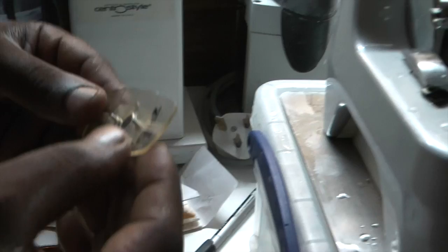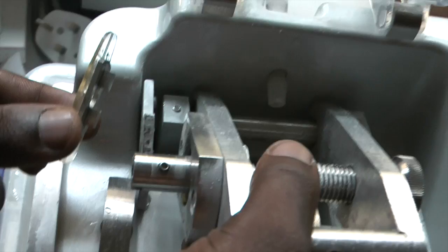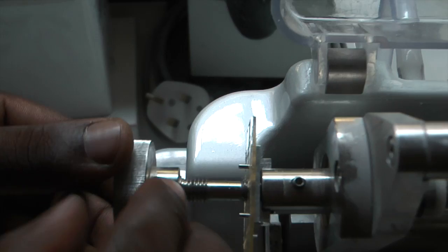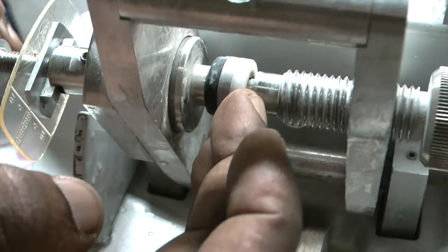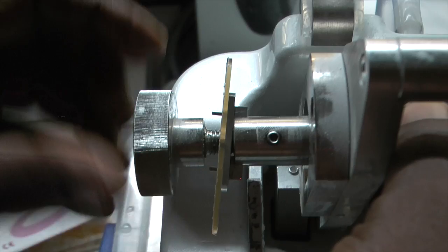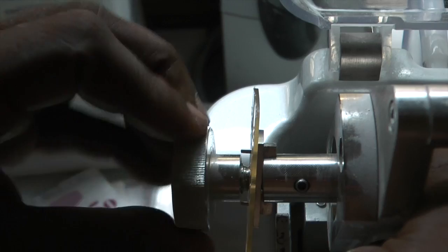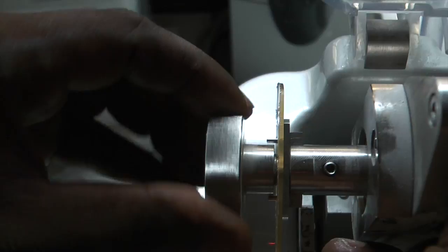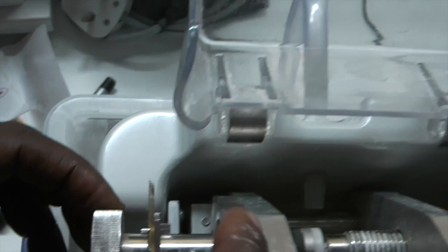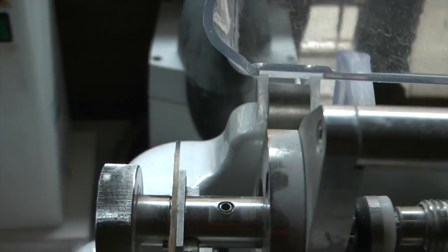We put it into the end of the shaft. Holding it in place, you can either use one hand to hold the other end so it doesn't slide, or you can tighten up that screw to keep it from moving. Once screwed, you need to tighten the former very tight because you don't want anything to move around. Once it's as tight as you can get it, we then tighten up the little grub screw, which is just to stop it from rotating. It means we can move the lens in two directions.